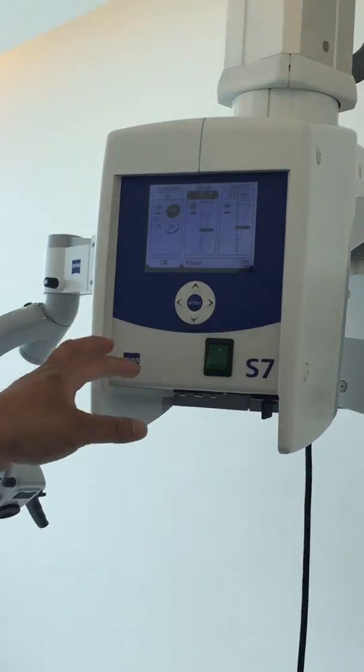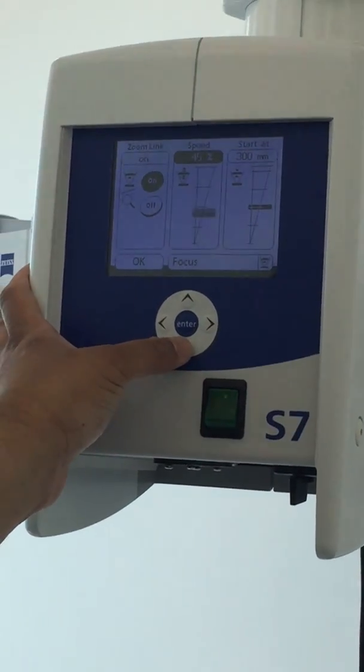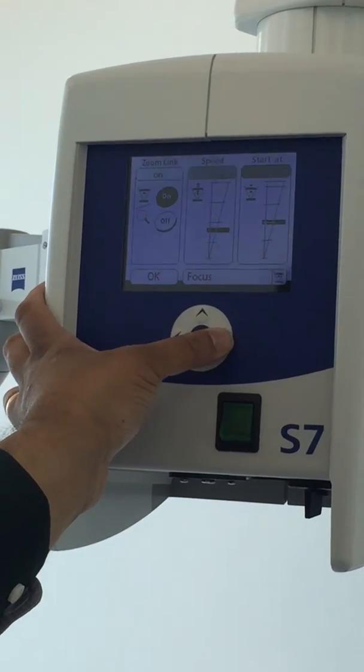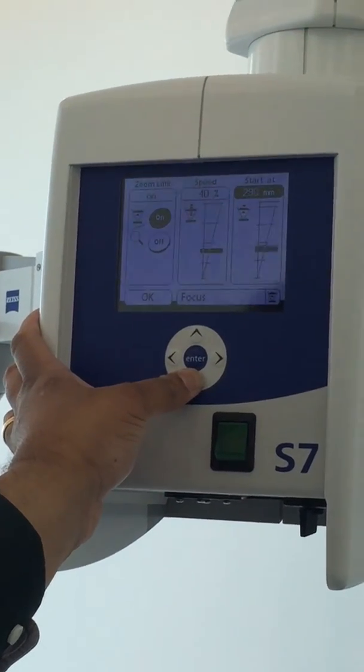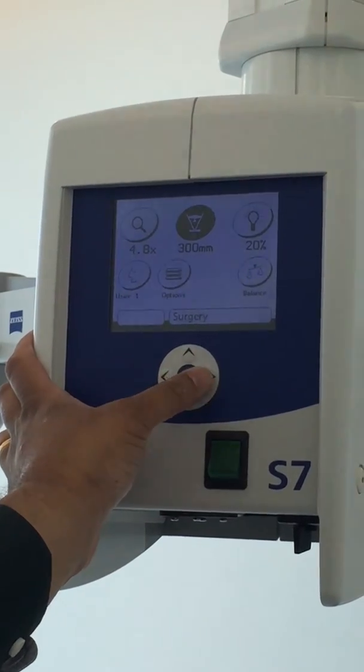When you switch on it starts at 300 mm. Some doctors like it a little lower, say you can bring it down to 200 and set it.